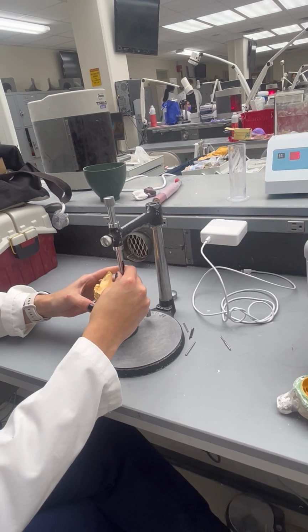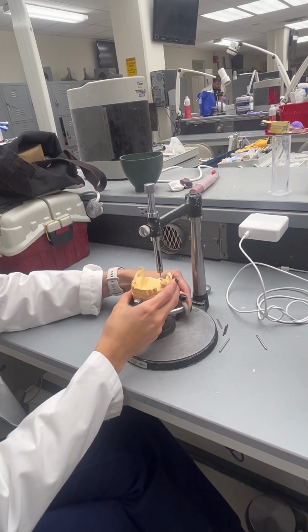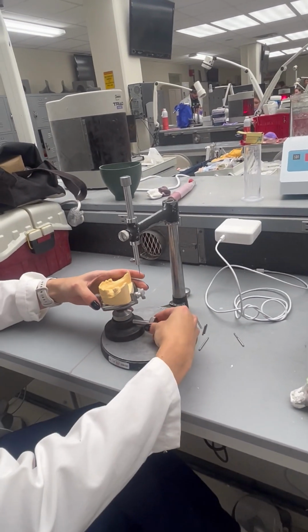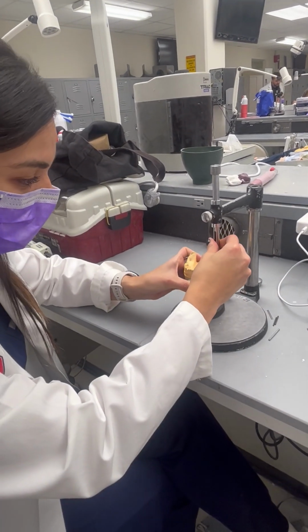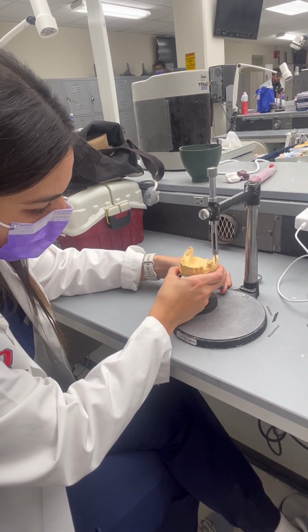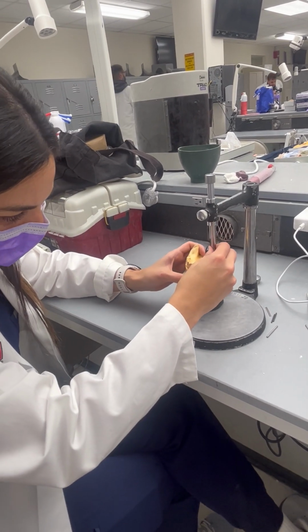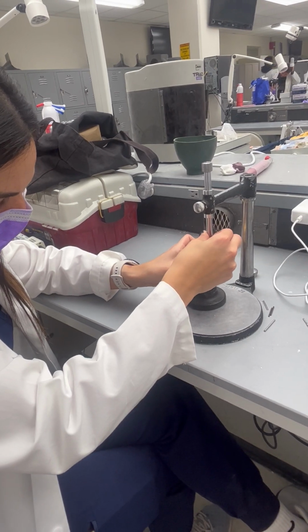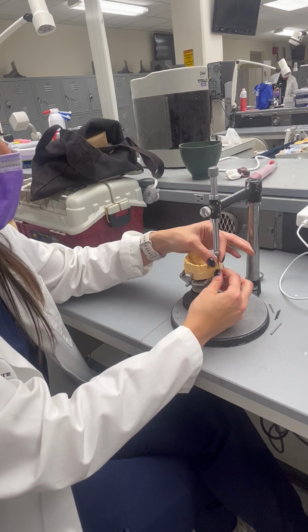So if I don't have one here, then I can try to find my undercut maybe on the lingual instead. It's okay if it's on the lingual? You shouldn't, but it's okay. It's better if you find it in the buccal for your practical. Just always try to find it in the buccal. So basically I'm just going to move this a little bit this way so I can have an undercut here, an undercut here, and an undercut here. Do we mark these? No, this is just a guide. This is the analyzing rod, so this is just for analyzing.